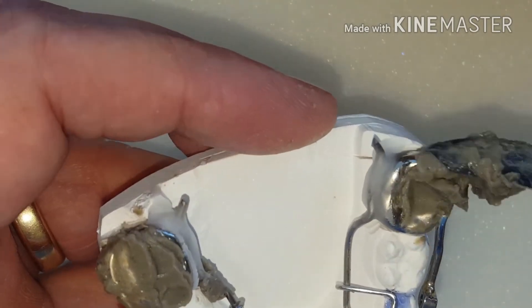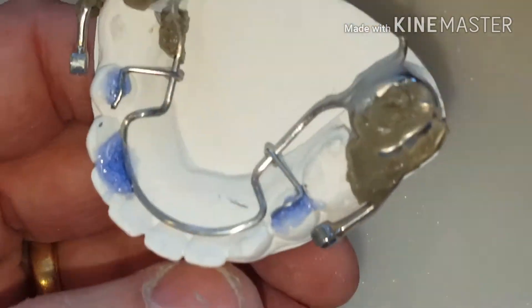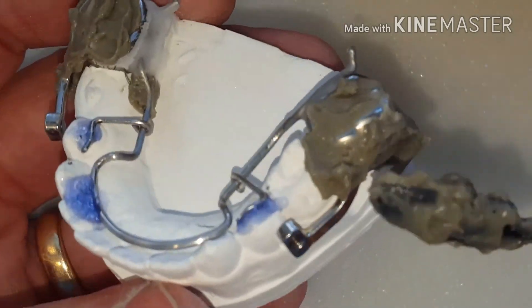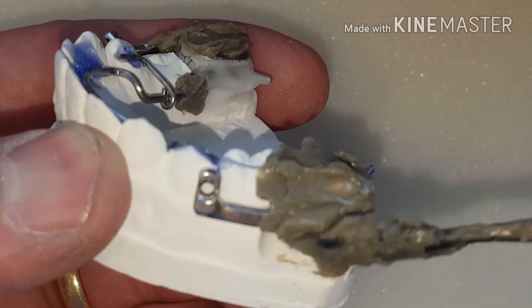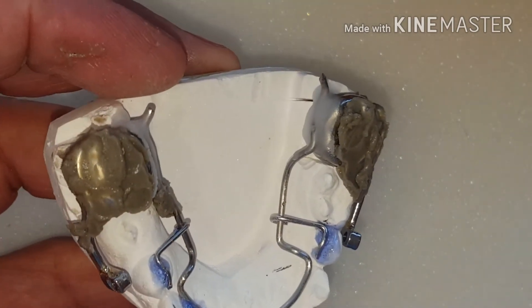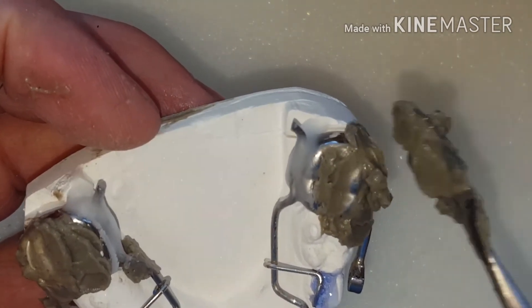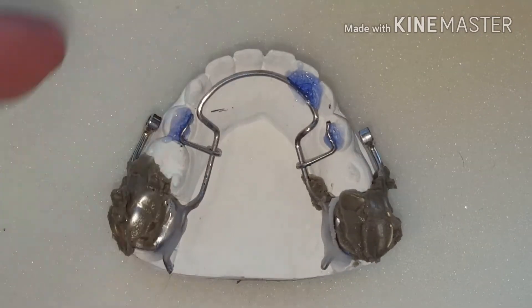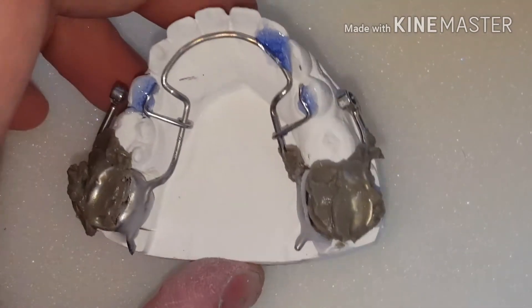Right now I'm going to bury the crowns — the surface of the crowns and all laser welded parts — especially on a Herbst appliance before soldering. Back to the Retainer Designer: he has a website, a blog, and you can hook up to his ortho YouTube channel and pay a monthly fee to watch longer ortho technique videos, which is a great opportunity to learn different ways to do ortho.